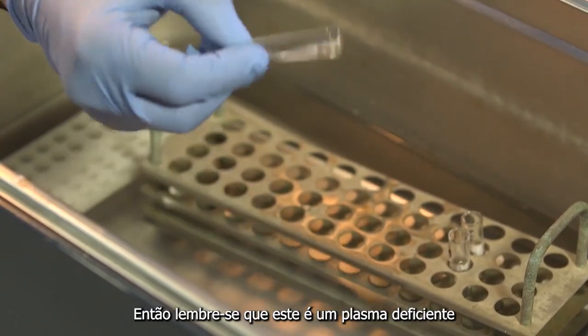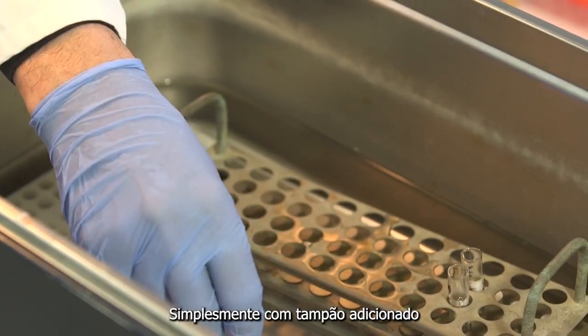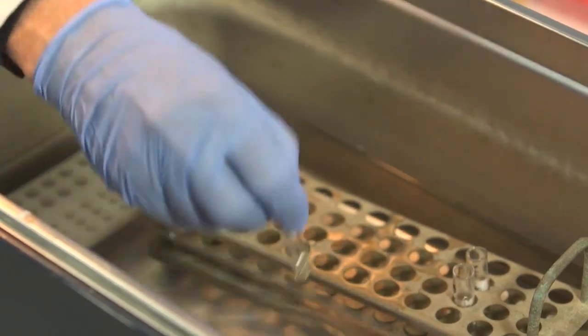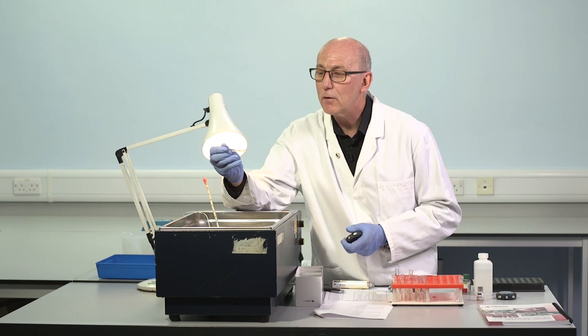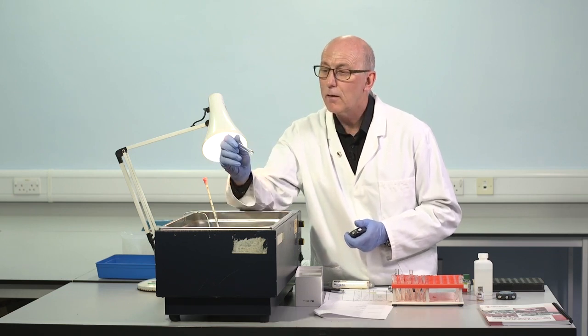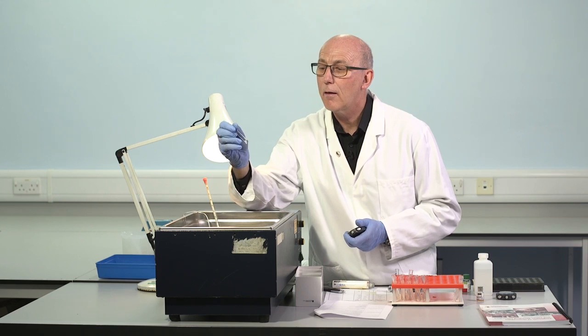So remember, this is deficient plasma, simply with buffer added, followed by APTT reagent and calcium. And we're looking for a clotting time. Aha.